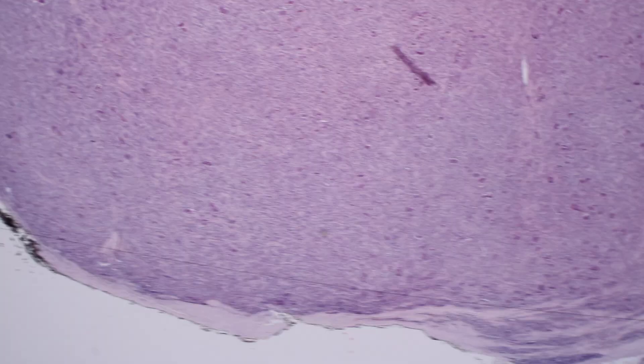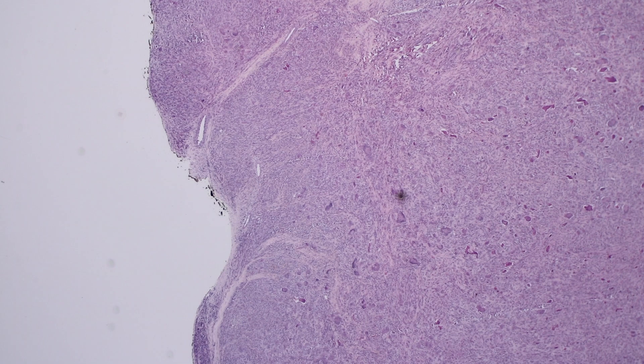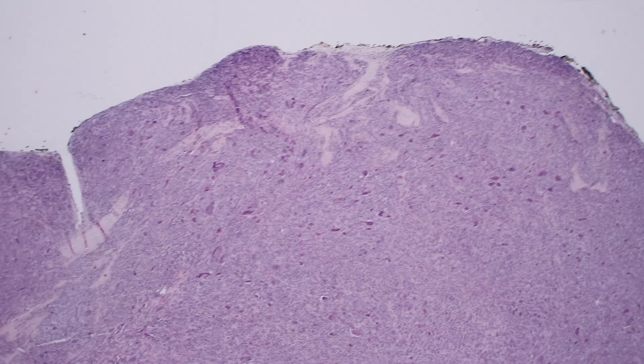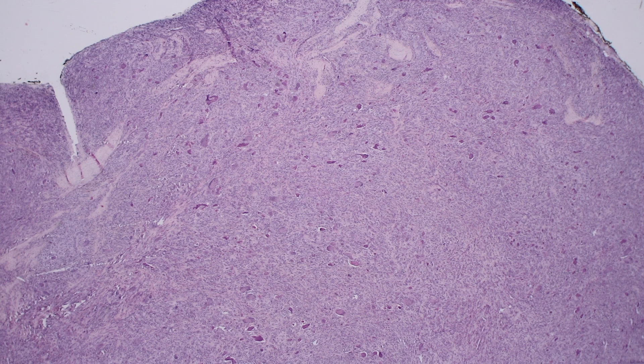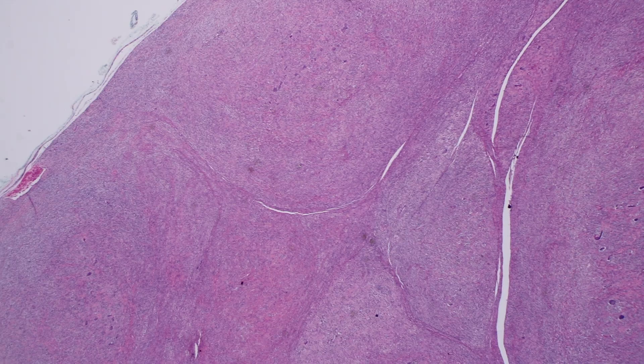The more infiltrative type — PVNS — is usually in the large joints, the knee being the most common site, though it can occur in other large joints, and rarely even in the foot. The distinction is mostly based on size and clinical appearance. Microscopically they are very similar, with a couple of exceptions we'll discuss. Here's another example — also the localized form, giant cell tumor of tendon sheath — but this one is much more cellular than the previous case.